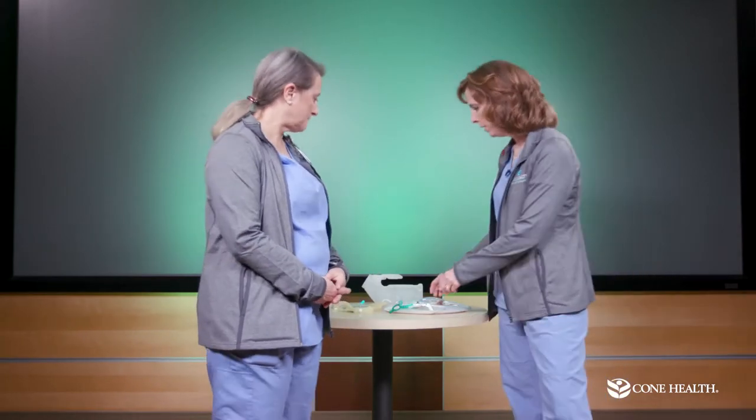We want you to practice good hand hygiene at home — wash your hands thoroughly whenever you're emptying or changing the catheter bags. Your catheter should only be removed by a urologist, no one else. We recommend this because if you end up in a hospital for some other reason, say a car accident, we don't want them taking out your catheter.